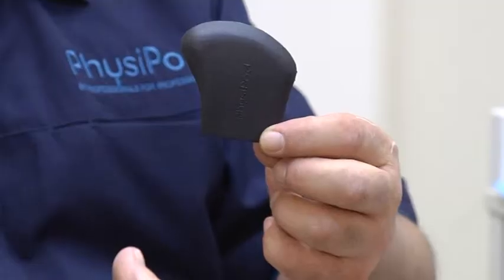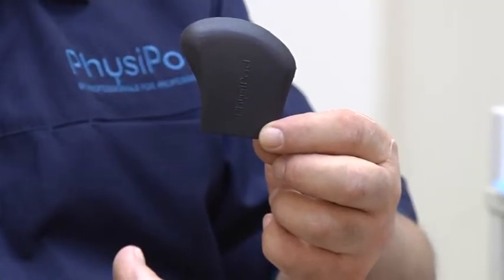Hi, I'm Nick from Physipod and I'm introducing our new metatarsal bar. The concept behind the metatarsal bar is that it will allow us to fit our existing range — that being the three-quarter insert and our new Trimthotic.